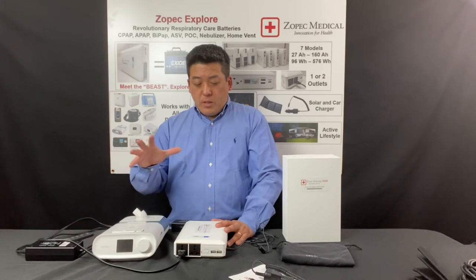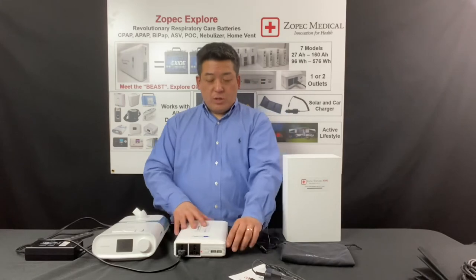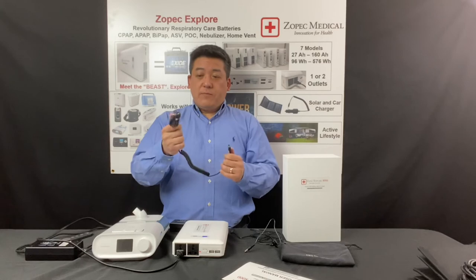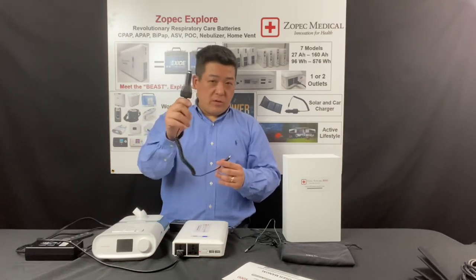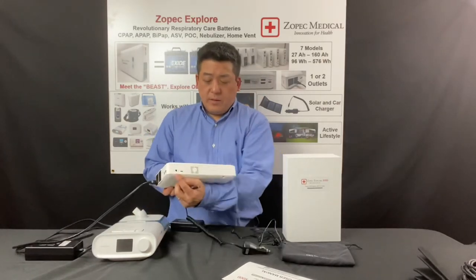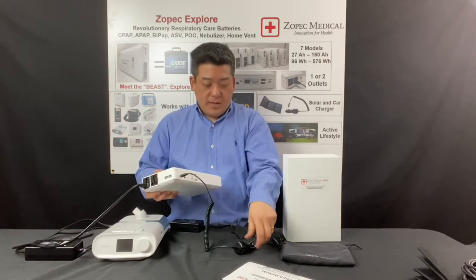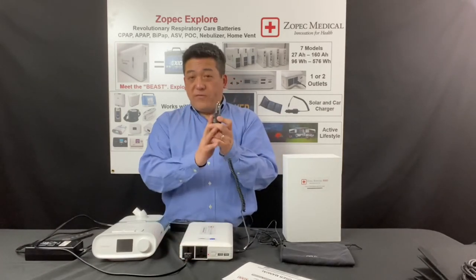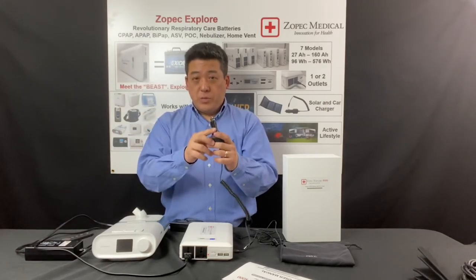There are three charging options. We demonstrated the wall charger. You can also use the car charger that comes with it for your RV or car cigarette lighter, or the 12-volt outlet. It goes into the DC charge port — just plug it in. It's 45 watts and charges almost the same speed as in the house, so it charges really fast.